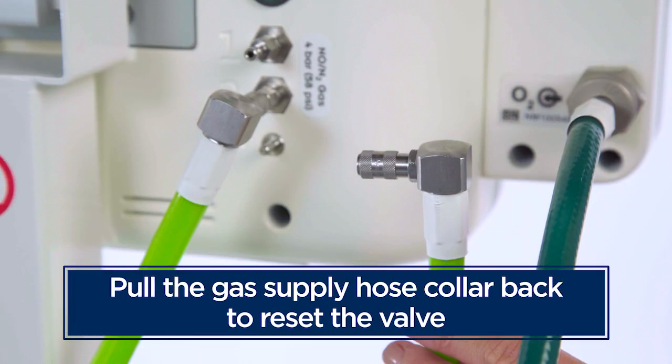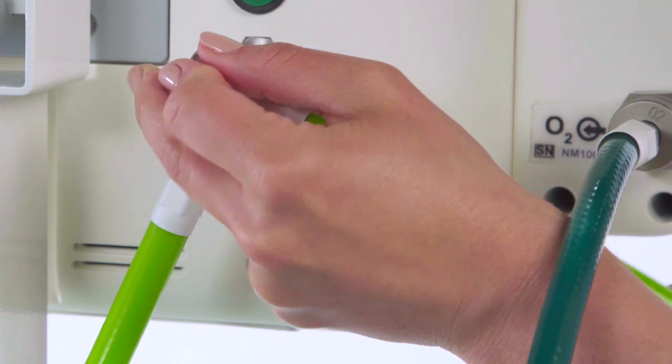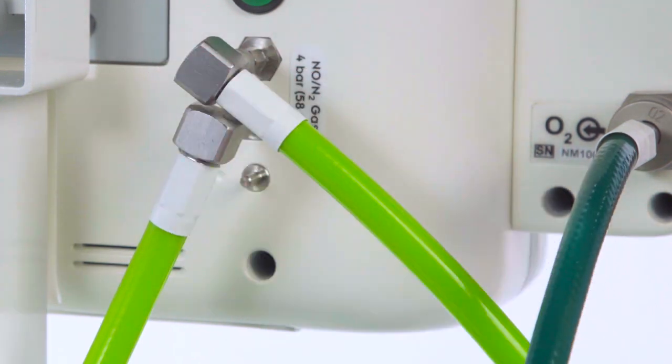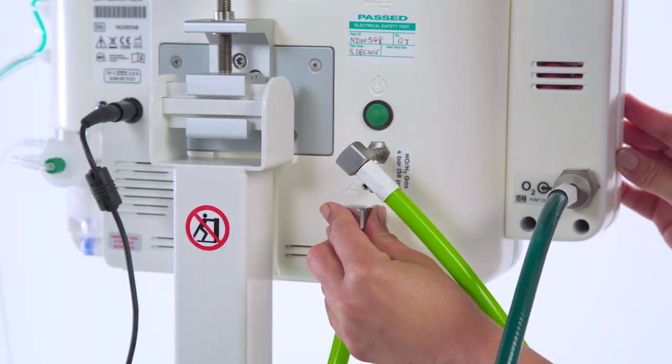Reset the valve by pulling back on the collar until you hear a click, and reconnect the hose, making sure you connect cylinder 1 to port 1 and cylinder 2 to port 2. This process reduces possible nitrogen dioxide formation during storage.